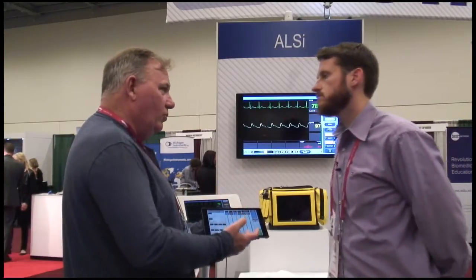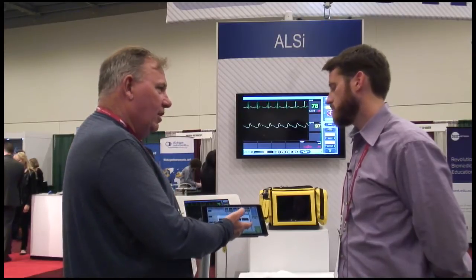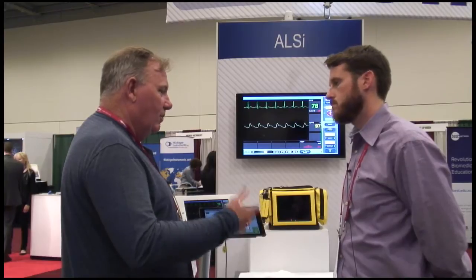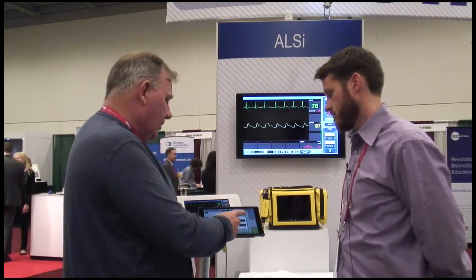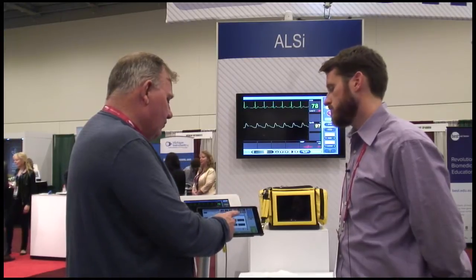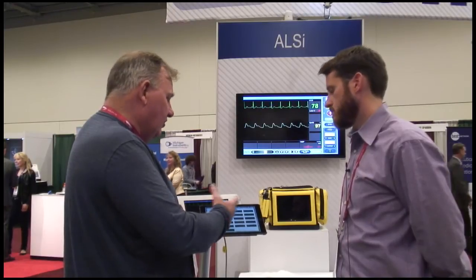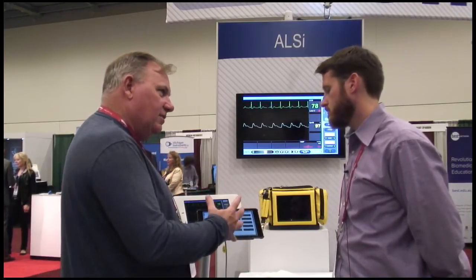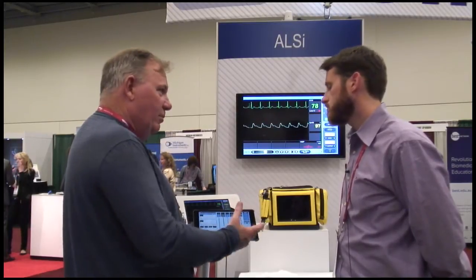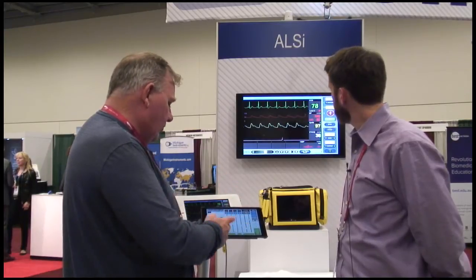We've introduced a whole new range of waveforms. Now you have a number of CO2 waveforms for people that are losing their paralysis, waking up, or are low breathers. CO2, which is very important, is now covered really extensively, as well as a new range of ECGs that are much easier to find. The interface has been greatly improved — from very simple before to even better. You can change waveforms and turn waveforms on.